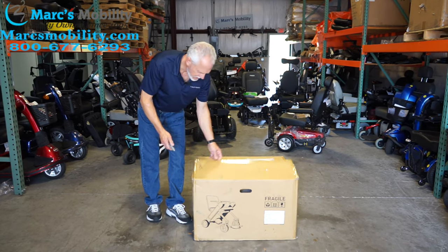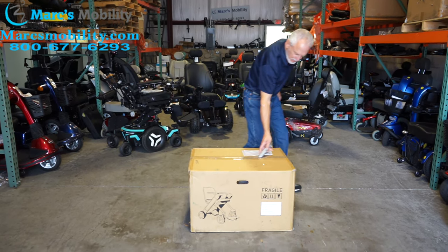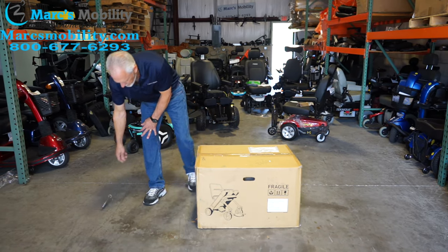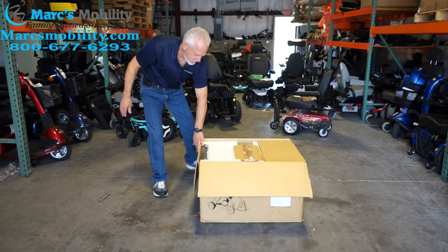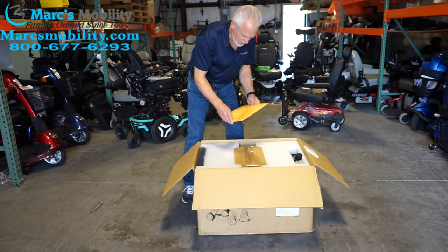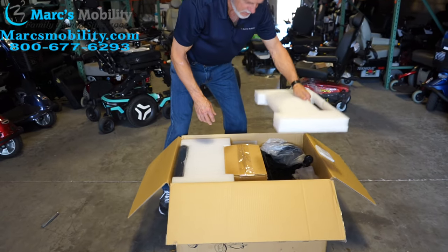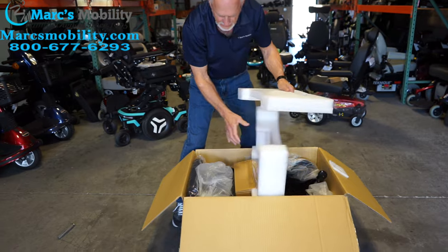Really all you need is a little sharp knife. Do your plastics all the way around like this. Then when you've got that done, you'll open the box like this, and you will see in the box — this is probably your instruction manuals here — and you have foam, so you'll take the foam out on both sides here.